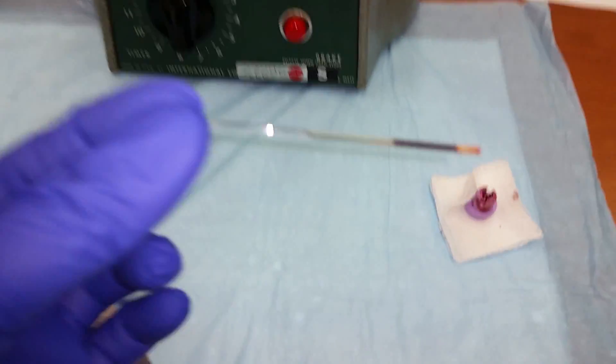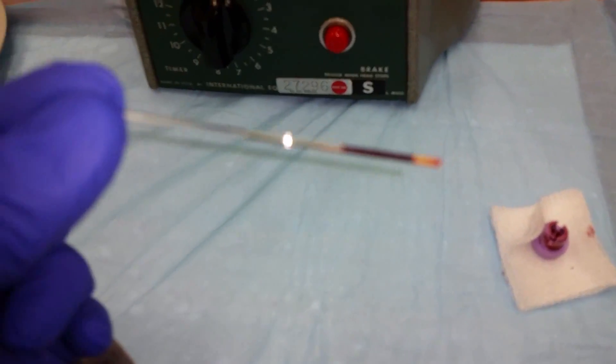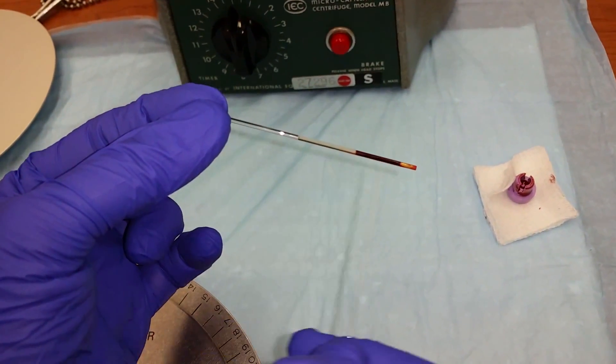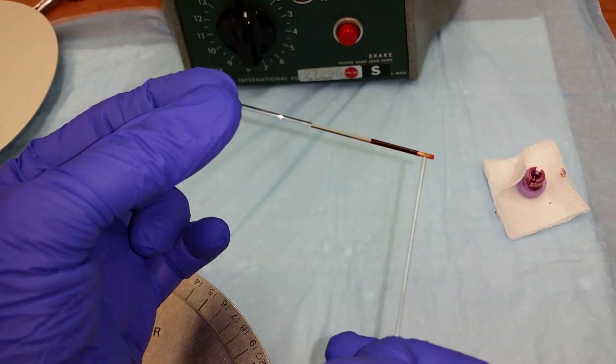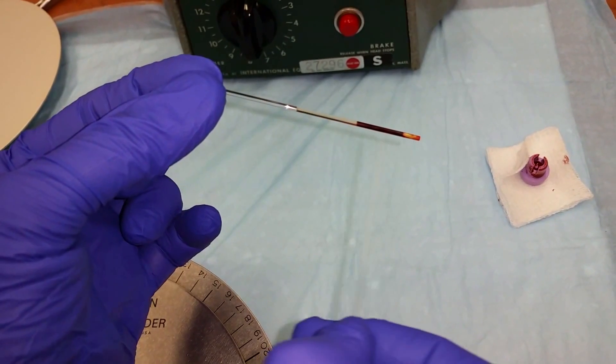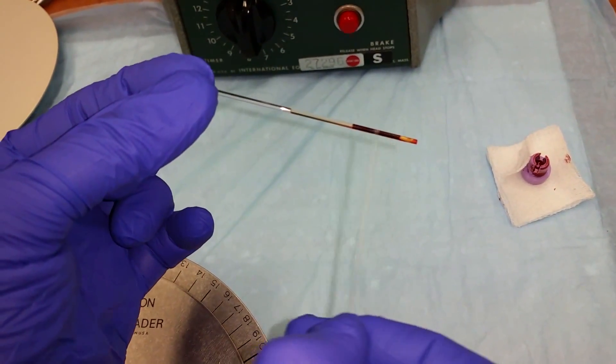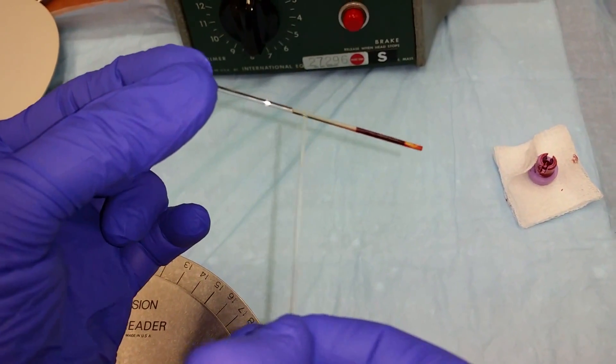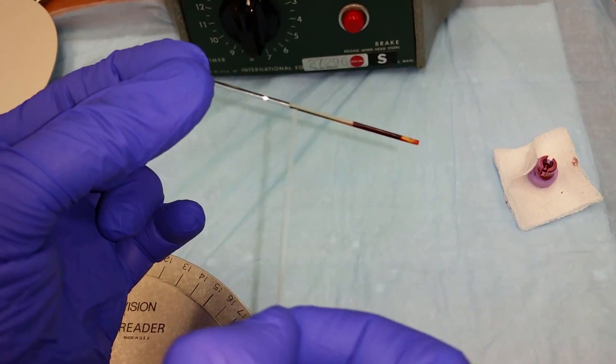What you can see is the column of blood, but now the bottom portion of the column of blood are just packed red blood cells. The top portion is a straw-colored liquid known as plasma.